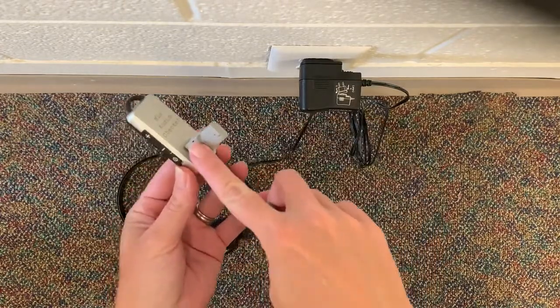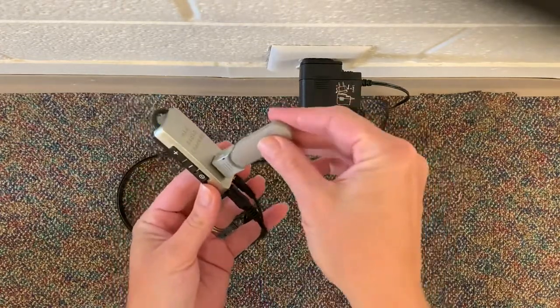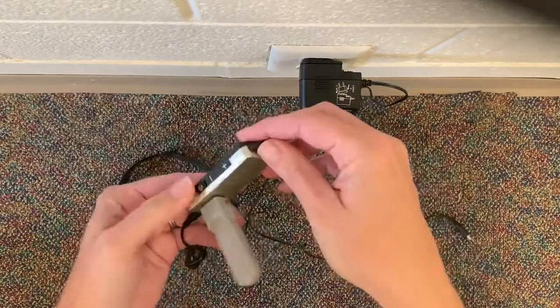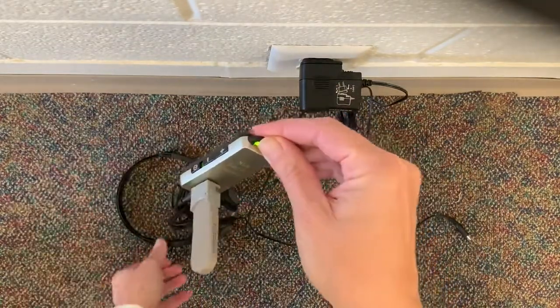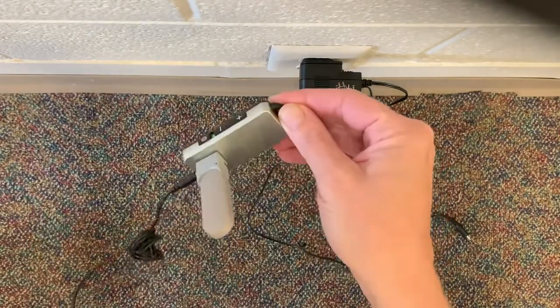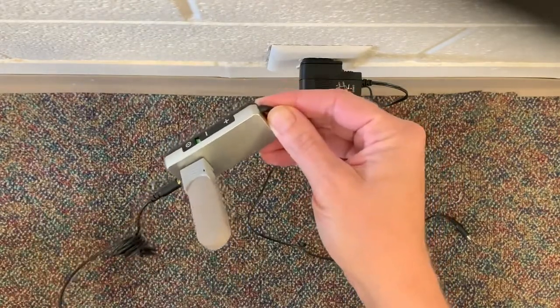This is an adapter here and you're going to place it on, unplug it from the wall, turn it on, and then put the headphones on while someone else is speaking into the teacher microphone and you should be able to hear it.